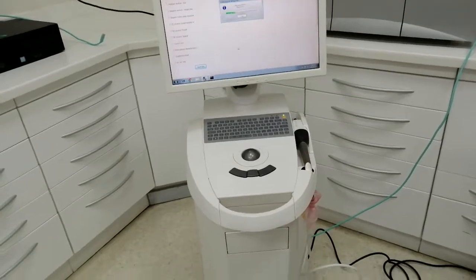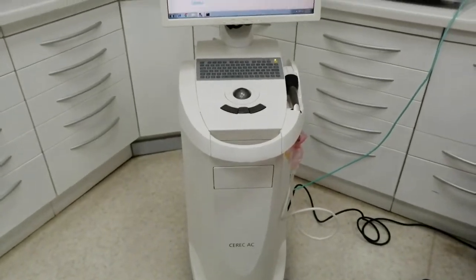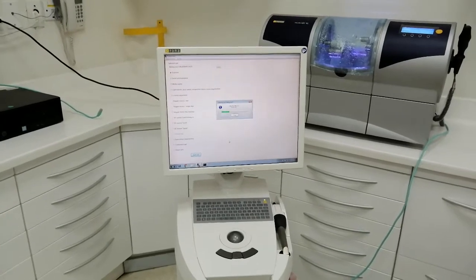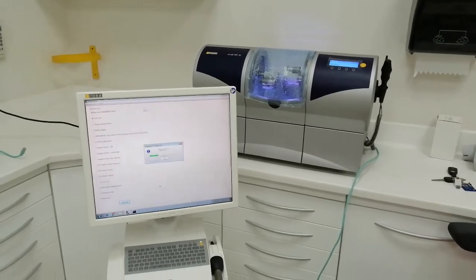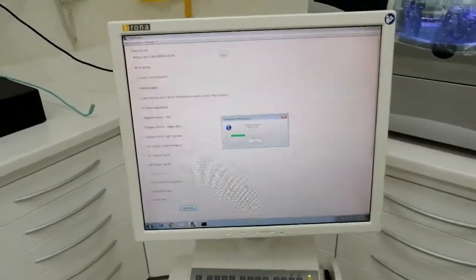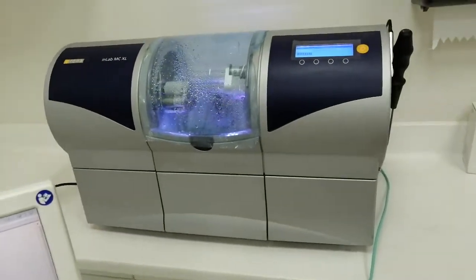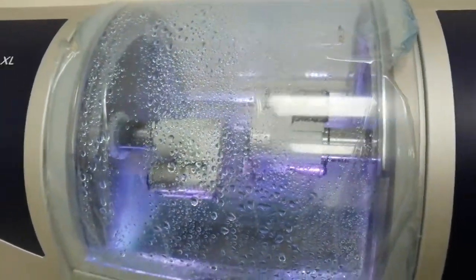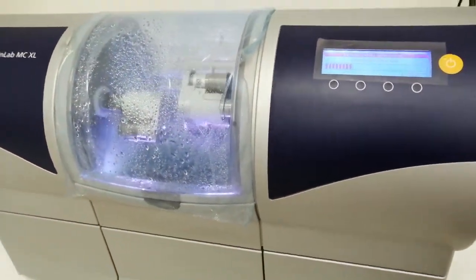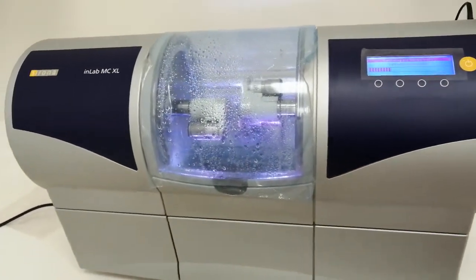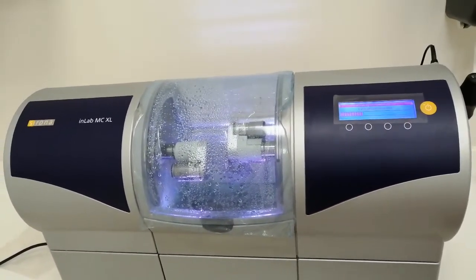This new computer is already shipping, maybe arriving in April. We just replace the computer. This CEREC machine is from Sirona, maybe 2016 or 2015. This inLab MC XL model.